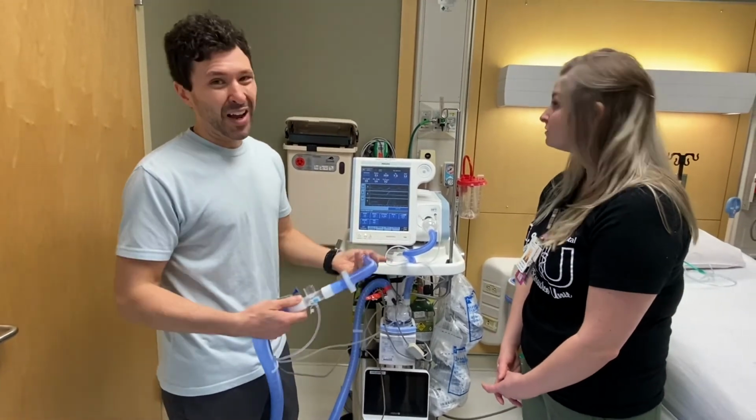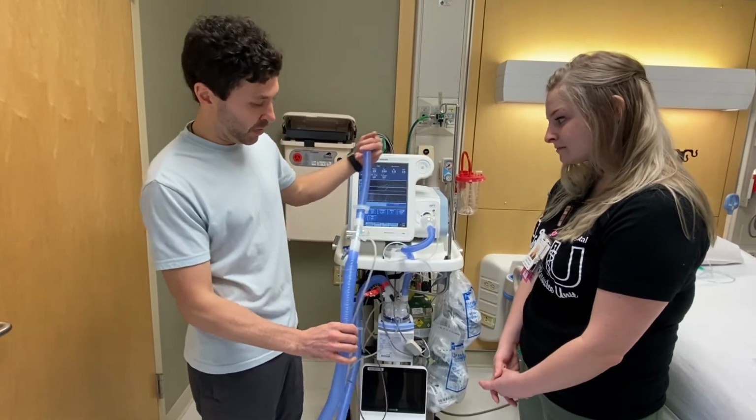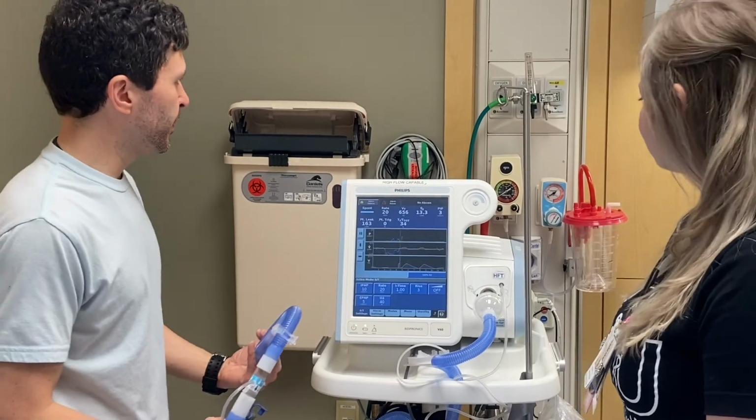That's good to know. And aside from mask leaks and proper mask fitment, in regards to the tubing, that's pretty much about it. It's only two pieces. There's not much to it. Okay. That's the basics with the BiPAP. Now we know.